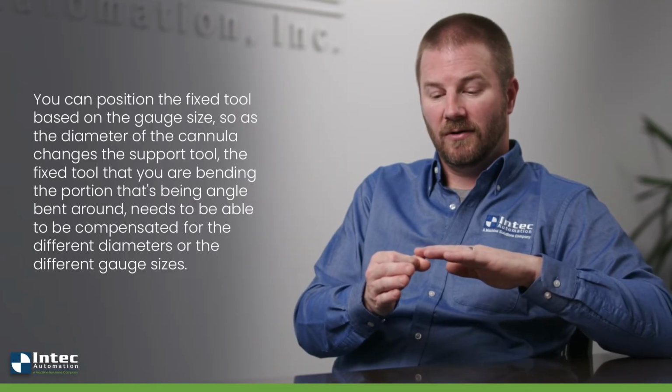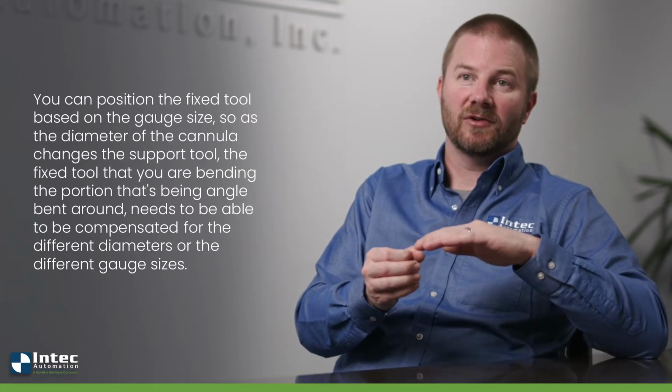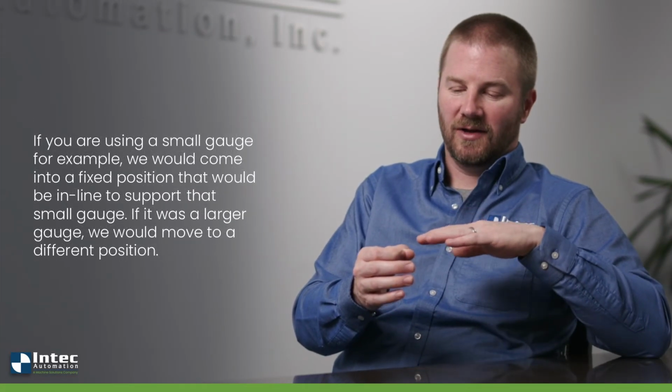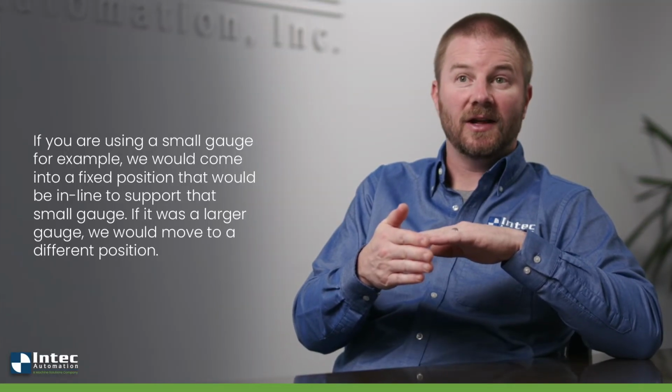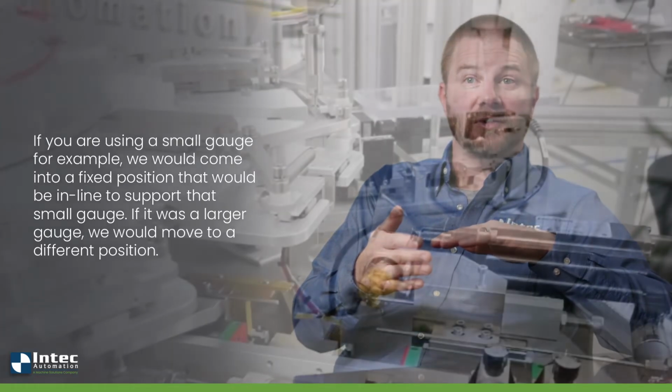So as the diameter of the cannula changes, the support tool, the fixed tool that you're bending the portion around, needs to be able to be compensated for the different diameters or the different gauge sizes. So if you're using a small gauge, for example, we would come into a fixed position that would be in line to support that small gauge. If it was a larger gauge, we would move to a different position.